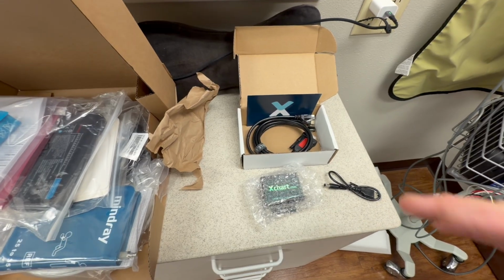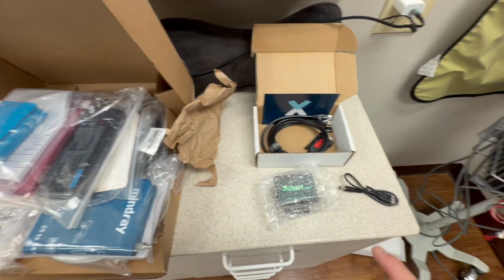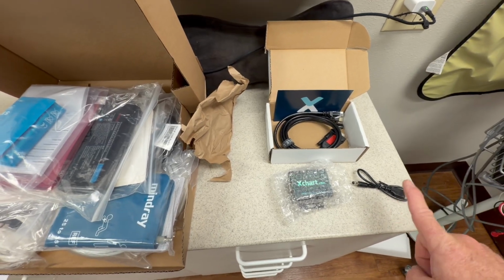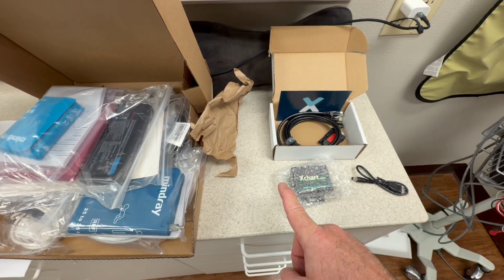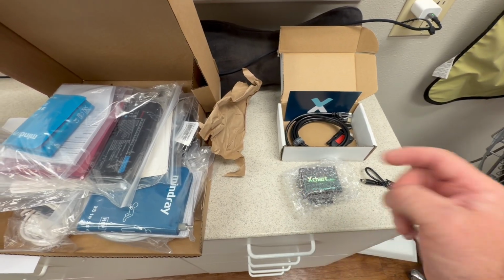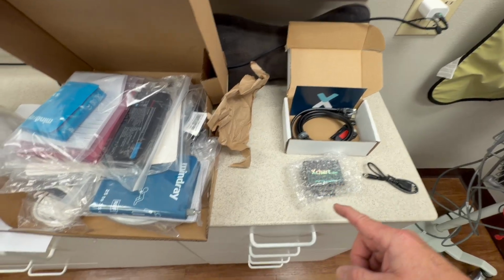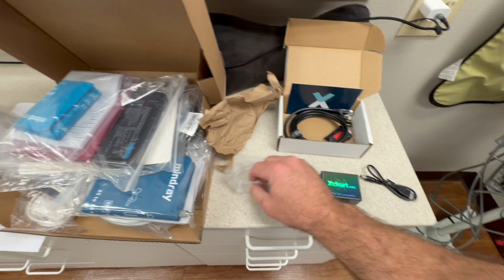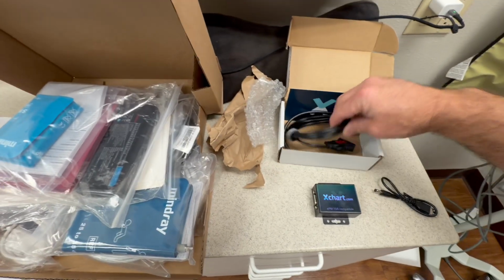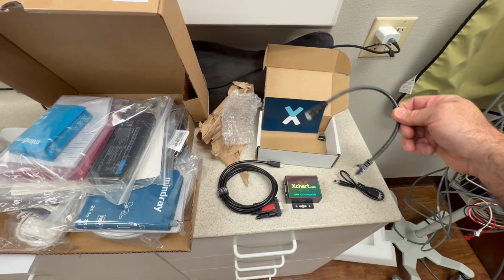Right, then you can go to any website you want from anything, from an Apple, iPhone, iPad. But to get it from the patient monitor into a computer, it has to go into a computer first to be put into the cloud. So that has to occur through a PC, and so it has to talk through one of these little devices. And so you have the cabling here, and I'll show you how to hook all that up together.